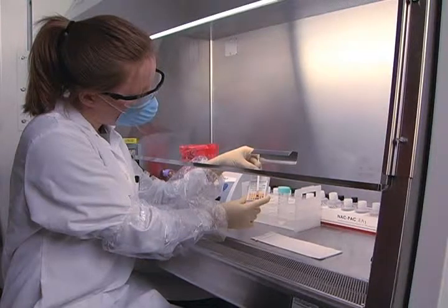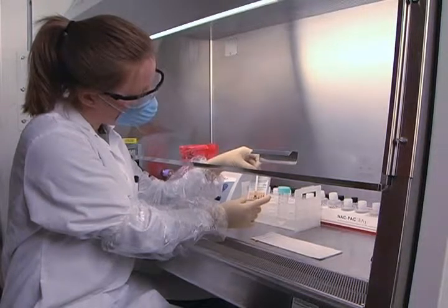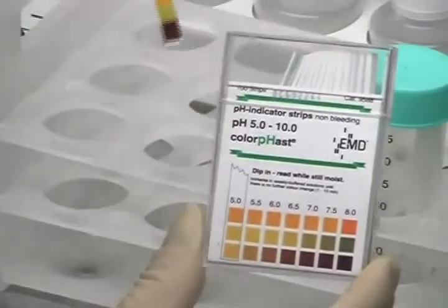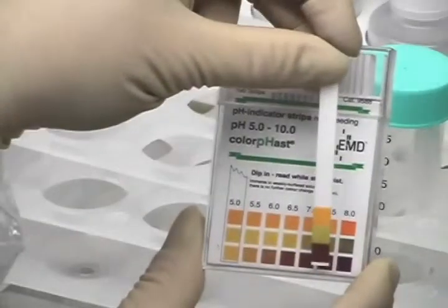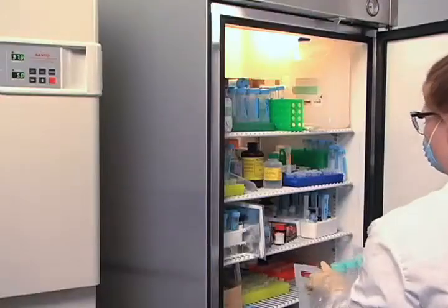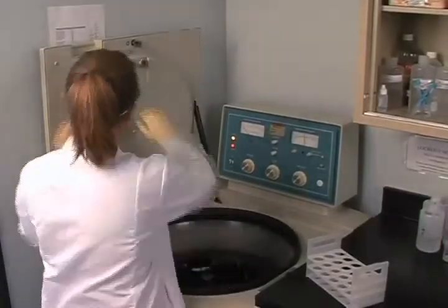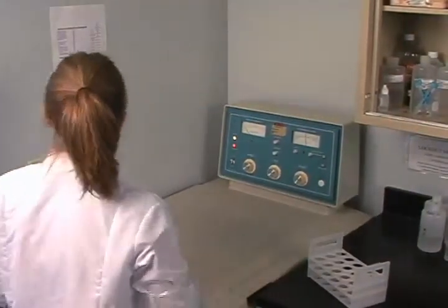In order to achieve specimen consistency and avoid instrument error, it is important to ensure that sterile body fluids are at the required pH. Just like sputum, sterile specimens with slight variations in pH can create false positive results in automated detection equipment. Even slightly acidic or basic samples can generate erroneous results. Centrifuge the sterile specimen liquids at 3,000 XG for at least 15 minutes in order to sediment any mycobacteria that may be present in the sample.